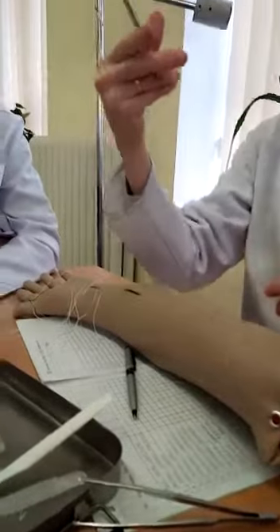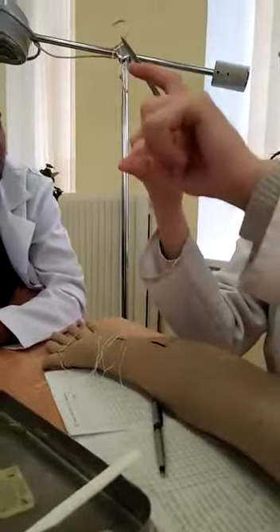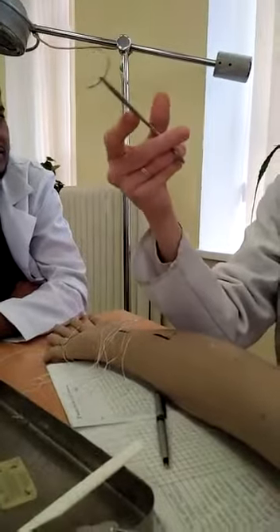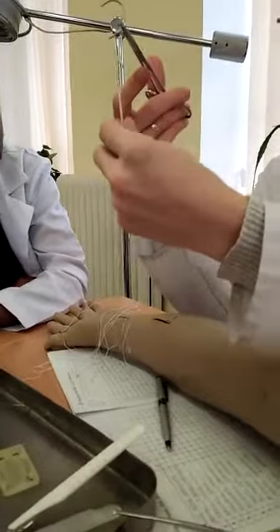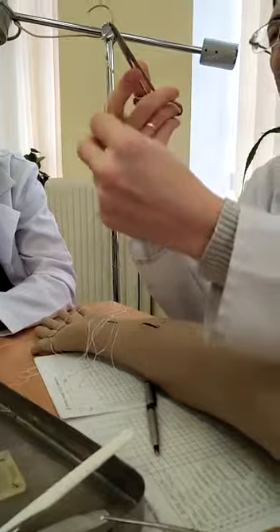The filament should stay in the needle asymmetrically — 70%, 30% — because this double part fixes the needle and fixes the filament during going through the canal.